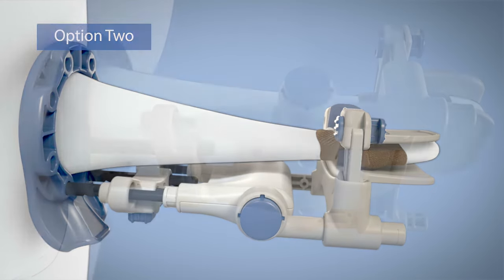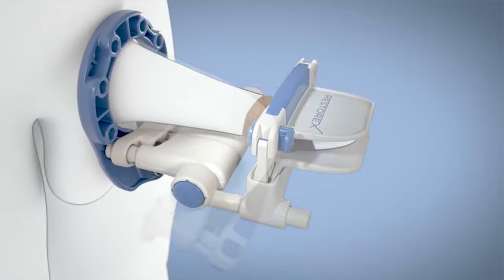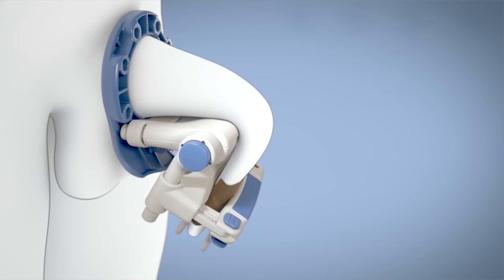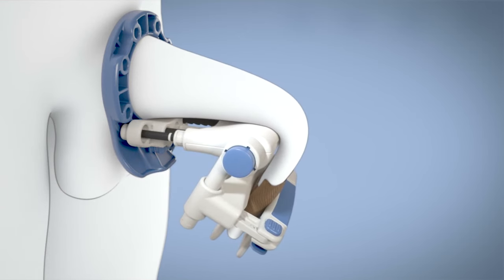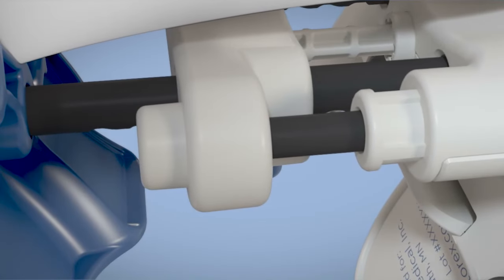After 15 minutes of treatment, take the tension off the device. Push both rotation buttons simultaneously to rotate Restorex in the opposite direction of your curvature, and then retension by slowly and gently releasing the springs. Advance one or more notches on the extension rod to stay in the traction zone.